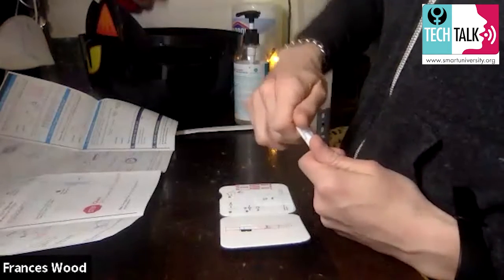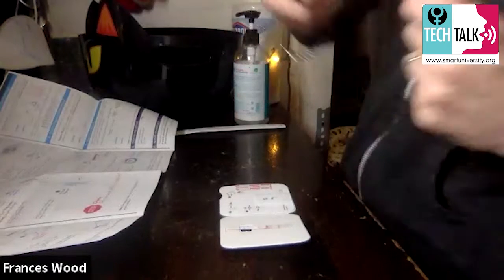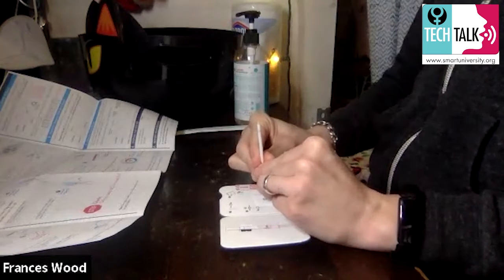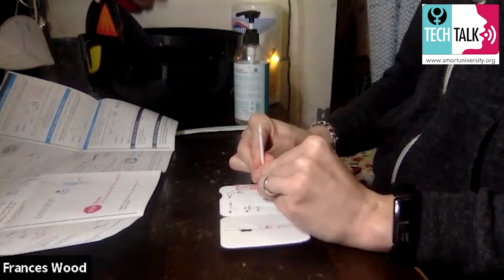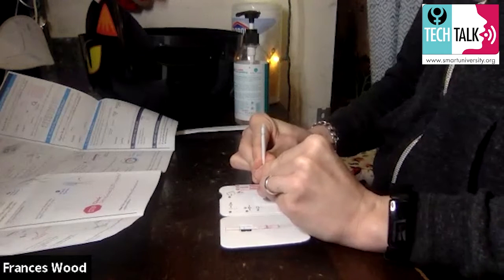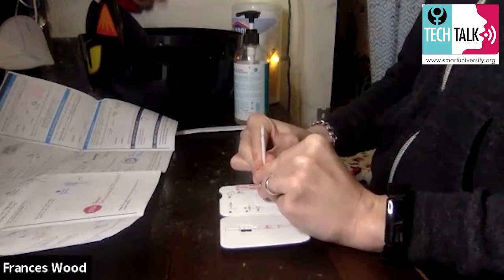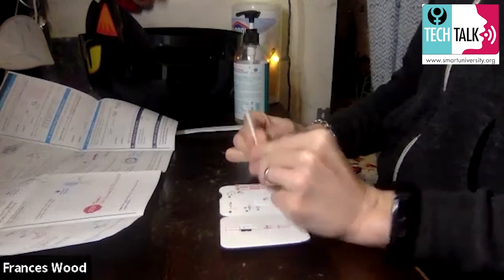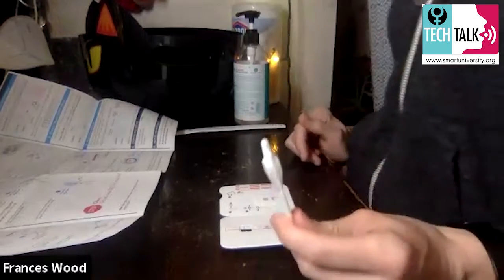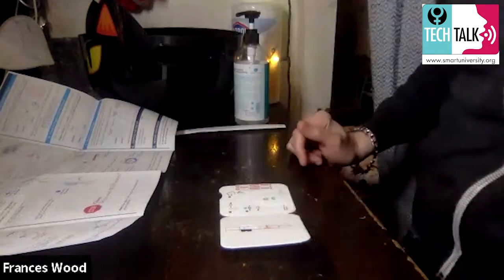This is like one of those old juice bottle things — you twist off the top. It's a little tricky, so be careful. Hold it kind of like a pen, straight up and down. You're going to do six drops: one, two, three, four, five, six. So you've got your six drops in there. Make sure it's six, and once you're done with that, throw the dropper bottle away.